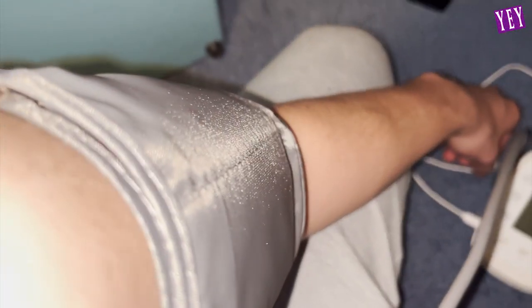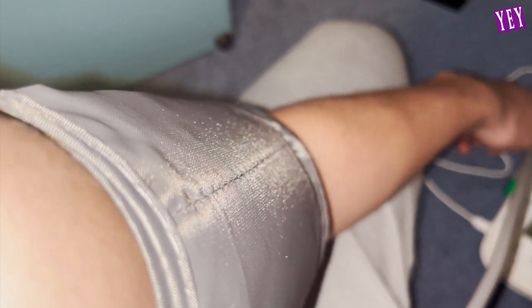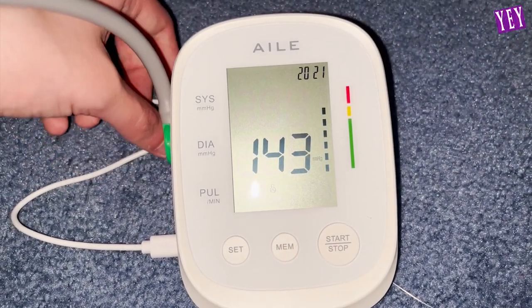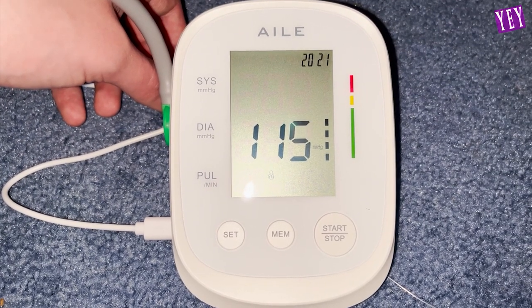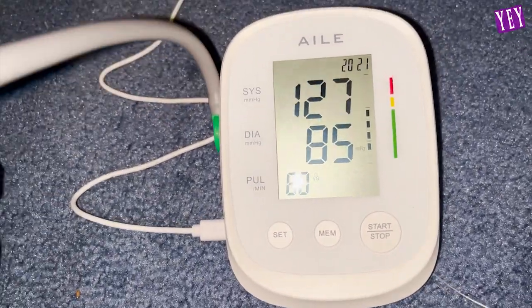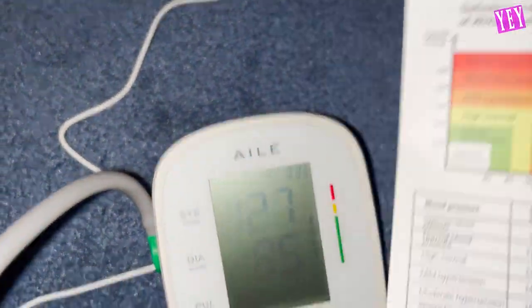All right, it's pumping up. Looks like I'm just getting stronger — looks like I'm just freaking yoked. And then we're going to test my blood pressure. I wonder what my heart rate is. I have an abnormally high heart rate normally. So my heart rate's 80 and my blood pressure's that. Let's see what that rates on the scale. I'm 127 over 85.